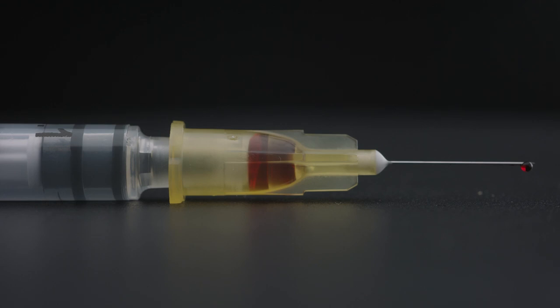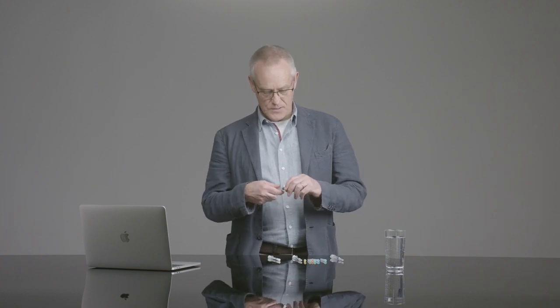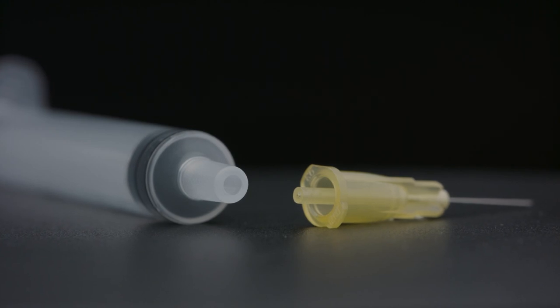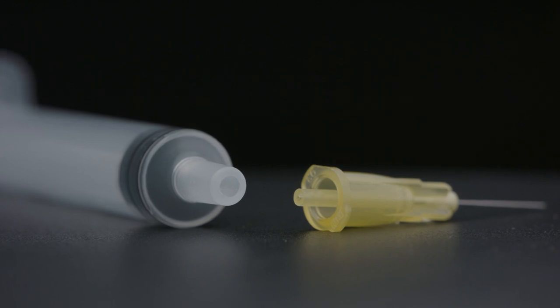Steps were taken to try and reduce the dead space in syringes for detachable needles, and there are two solutions to that problem with varying degrees of success. The first solution is what's called a low dead space needle. Low dead space needles have a plastic spike in the hub which goes down into the tip of the syringe.